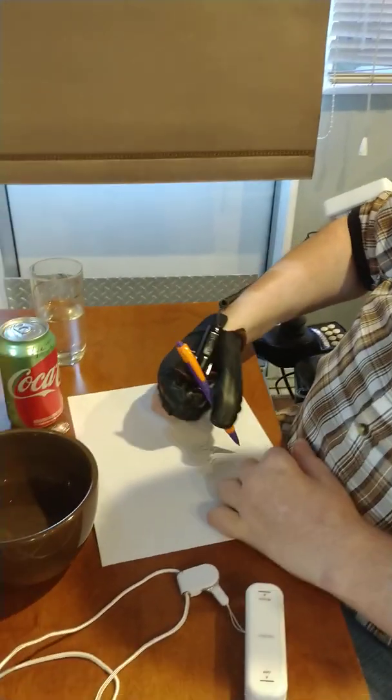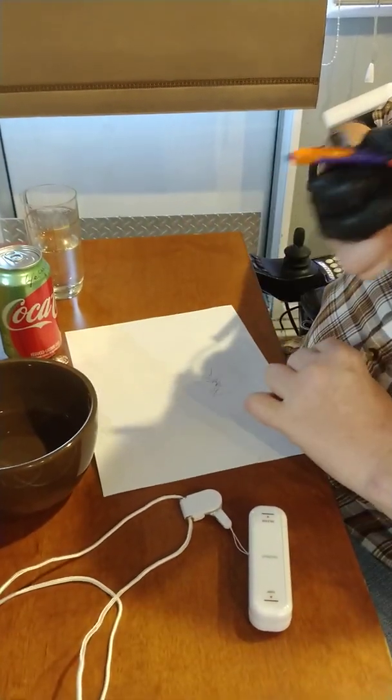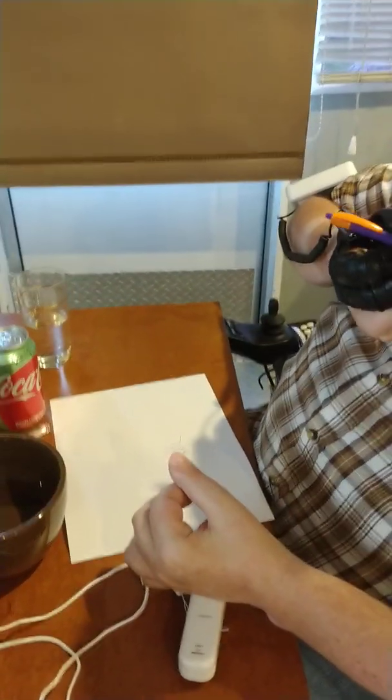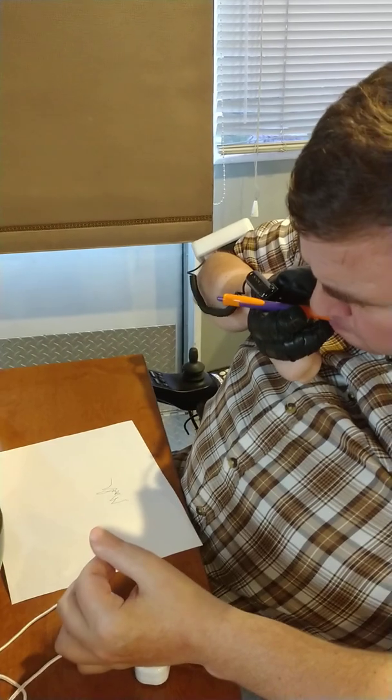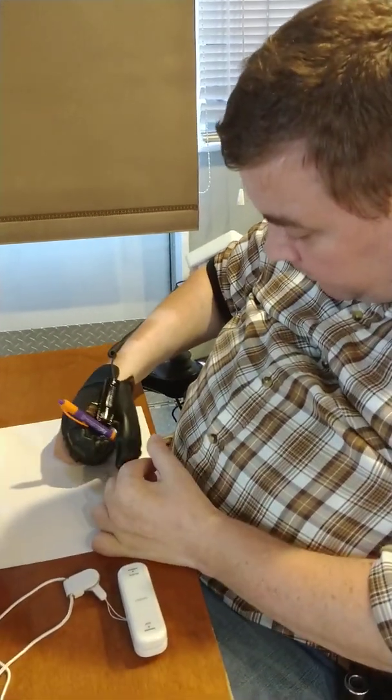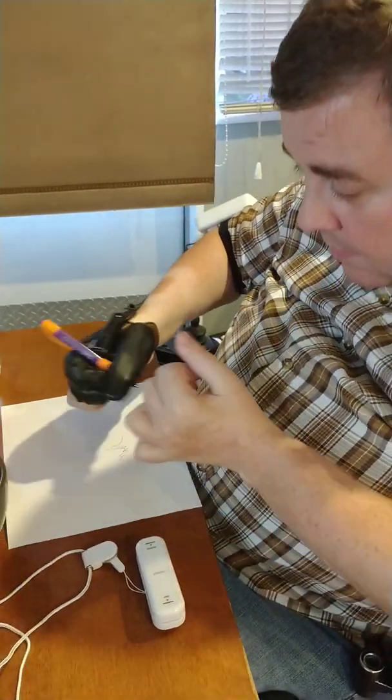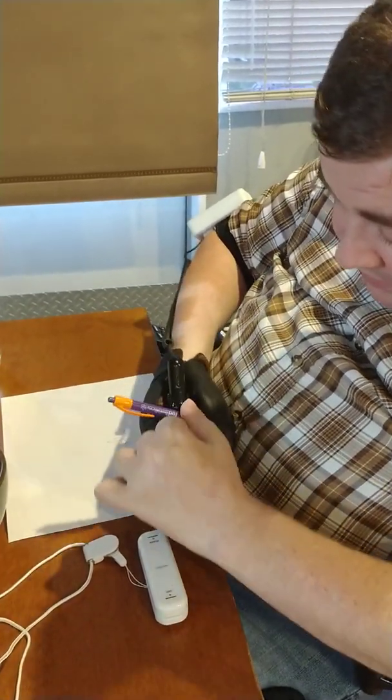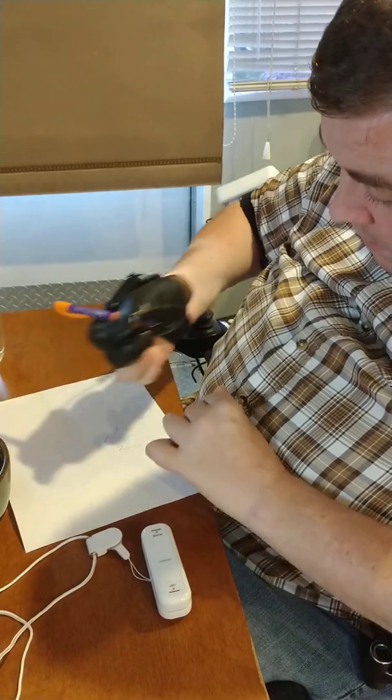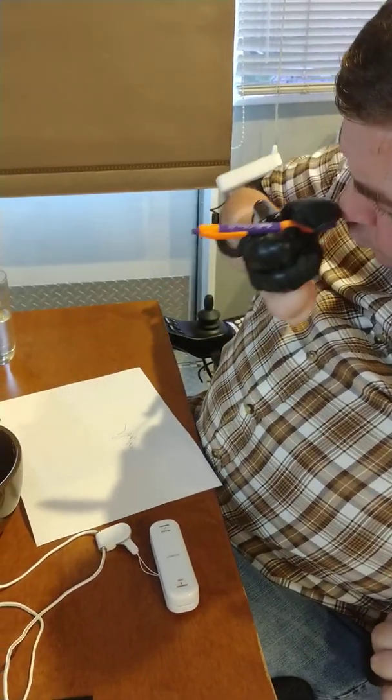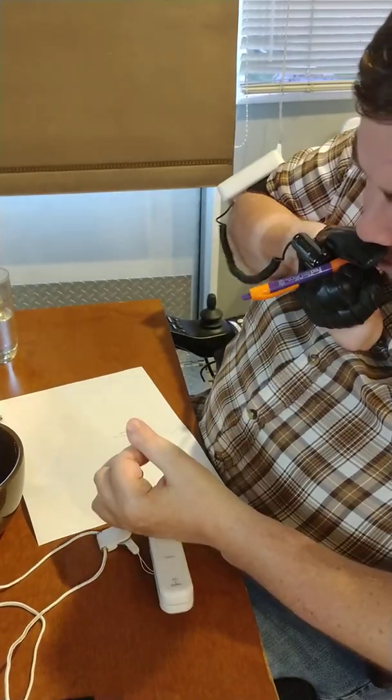Now I can kind of see the pen tip, but I don't have a grip. My fingers are trying to kind of almost squeeze it up against the motor housing on my index finger. That's not really working well.